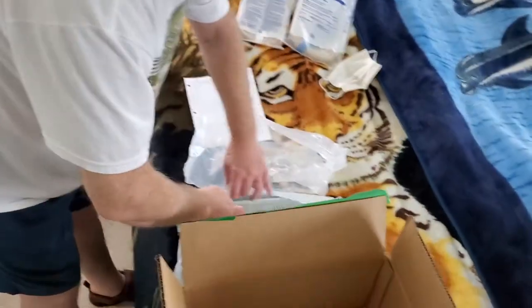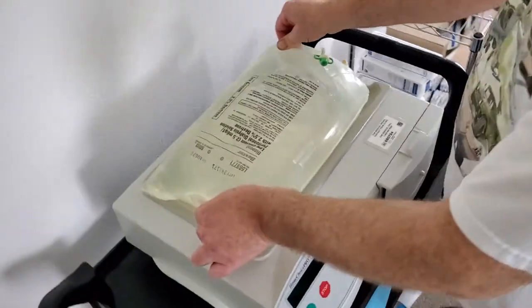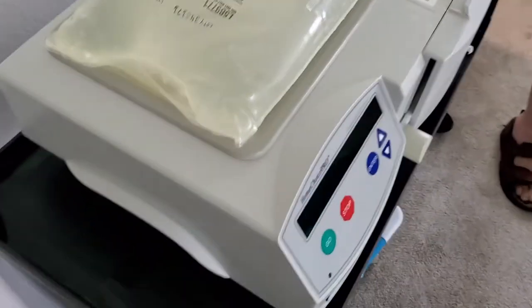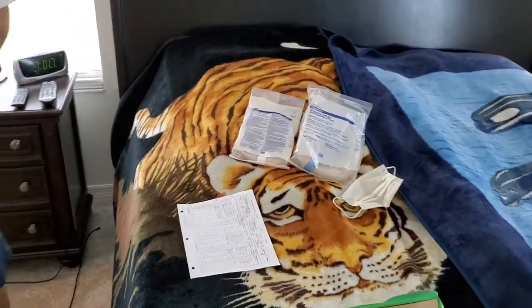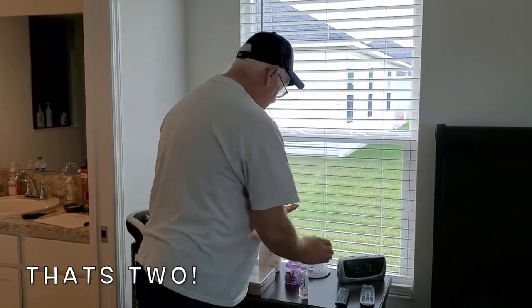Same process for the second bag. Then there's a button in the back of the machine that you're going to turn on — let the machine start booting up. While it's doing that, I'm going to re-sanitize my hands. I plan on doing peritoneal dialysis as long as I possibly can, and the way to do that is to just ensure your safety. Whatever I touch, I come back and re-sanitize again.